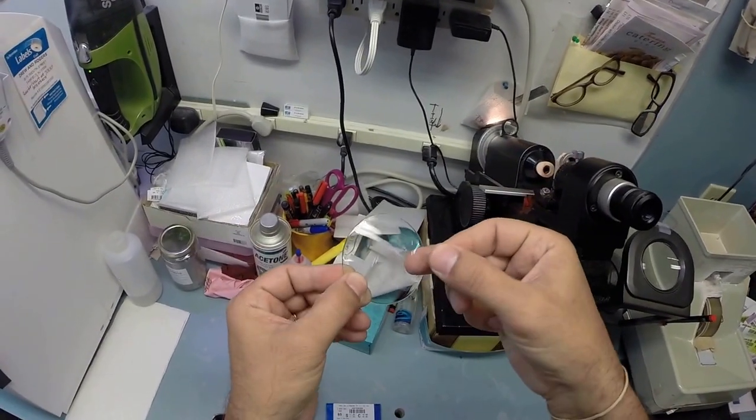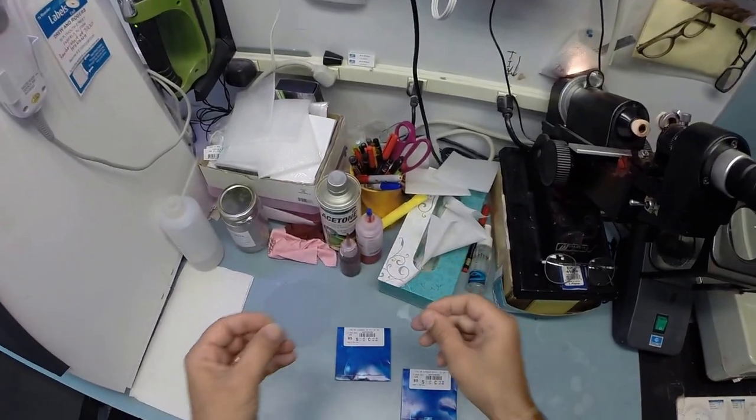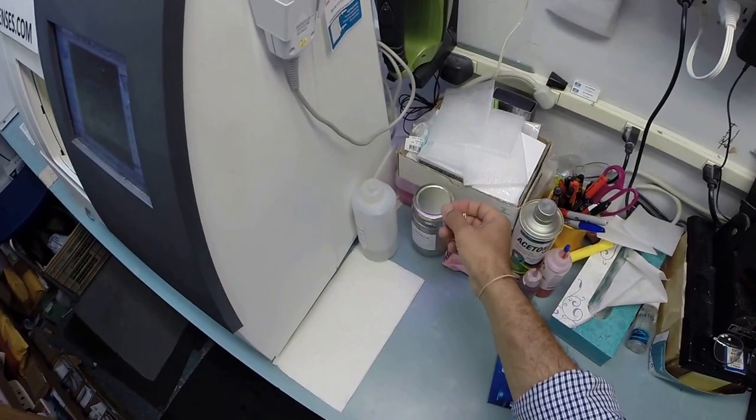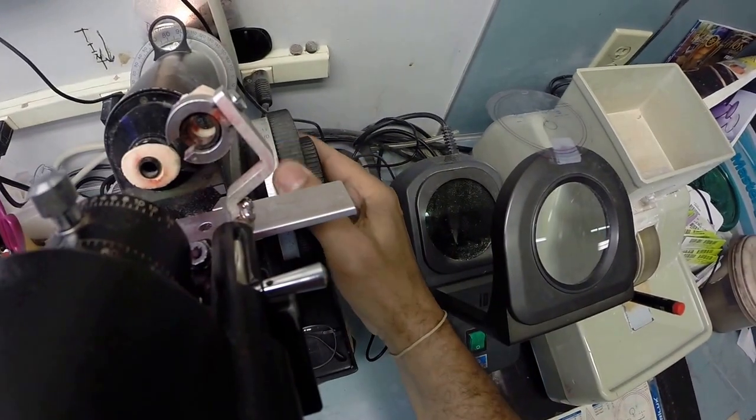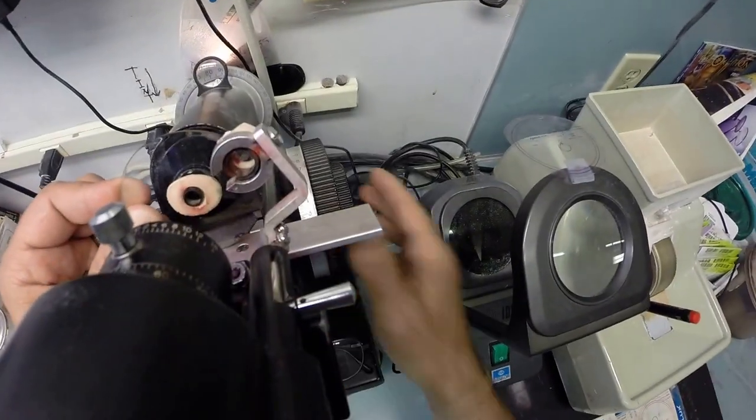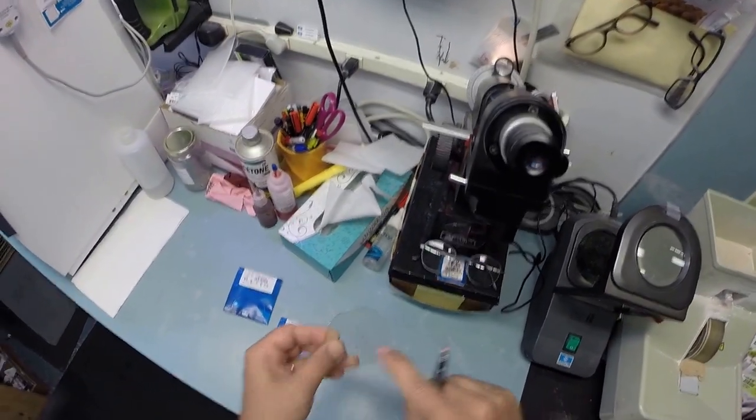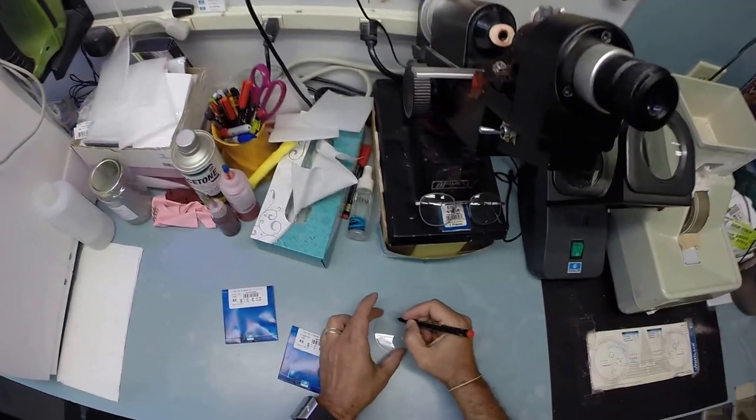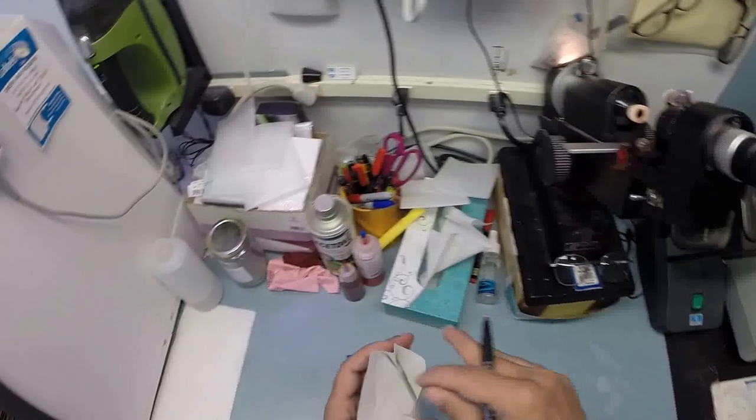Now, the lens comes with a little laminate on the front of the lens to protect it too, so nothing rubs against the front surface of the lens during shipping. And you're going to receive all of this. I'm going to stick it right there, so I don't lose it. But I'm going to put the power drum on my Marco 101 lensometer to 125. Actually, let me zero everything out and make sure the crosshairs of the scope are exactly where they should be. And I'm going to put one dot on the center of your lens. That is the optical center that's going to sit directly in front of your pupil. Let's name that one, put an R on there for right.